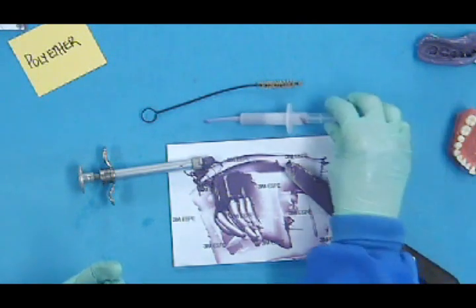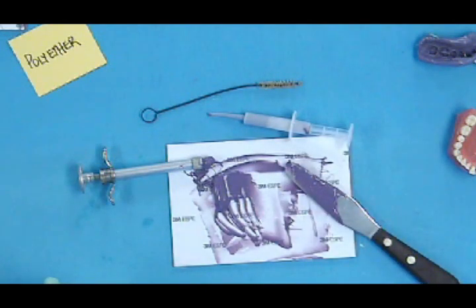Disposable syringes certainly are more convenient because you can just throw them away, but they're not as cost effective as the other syringes. So this is polyether.